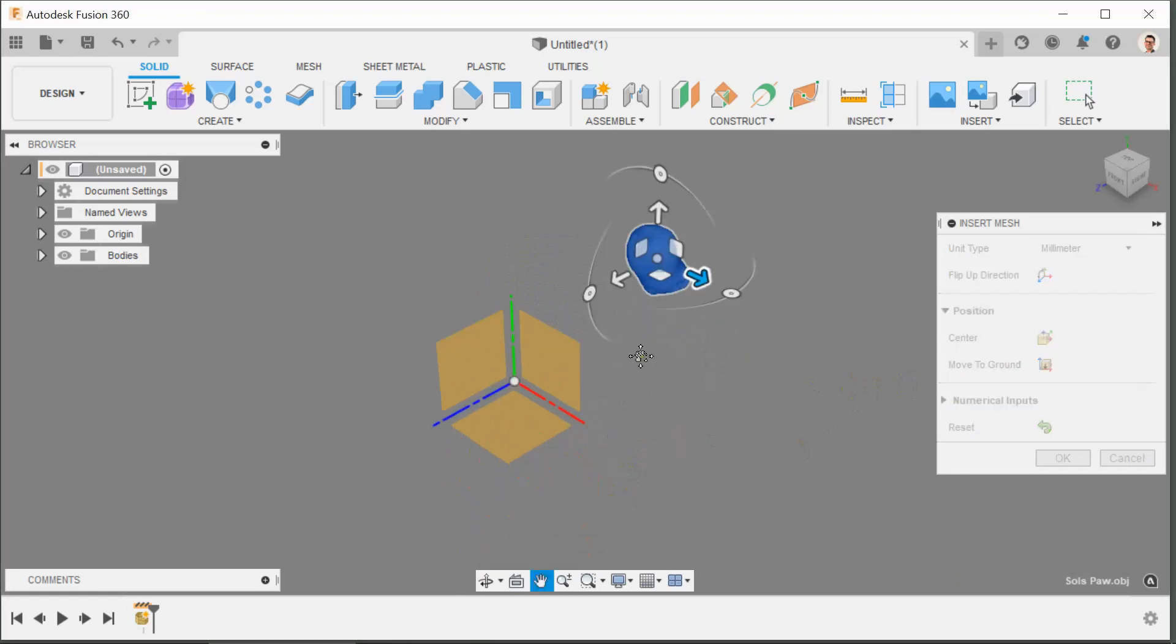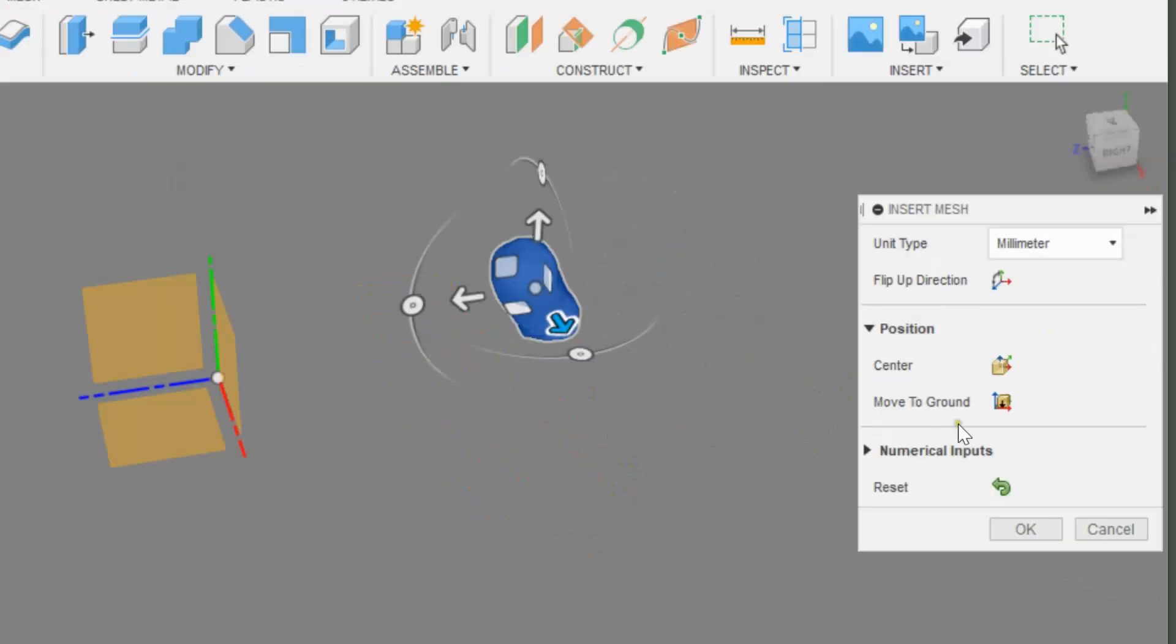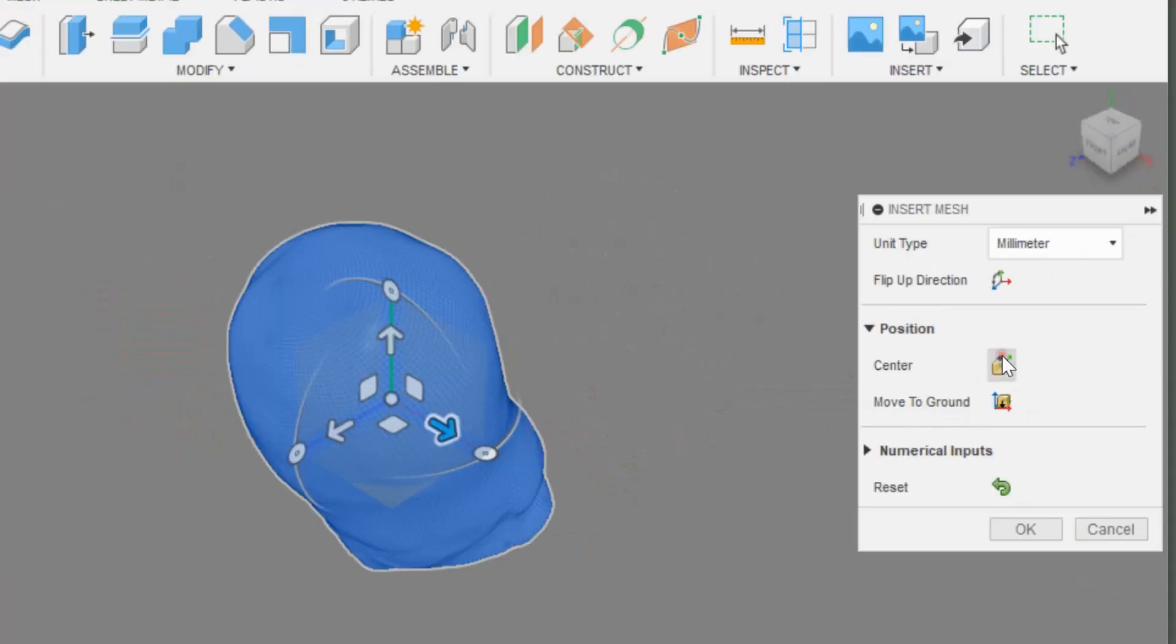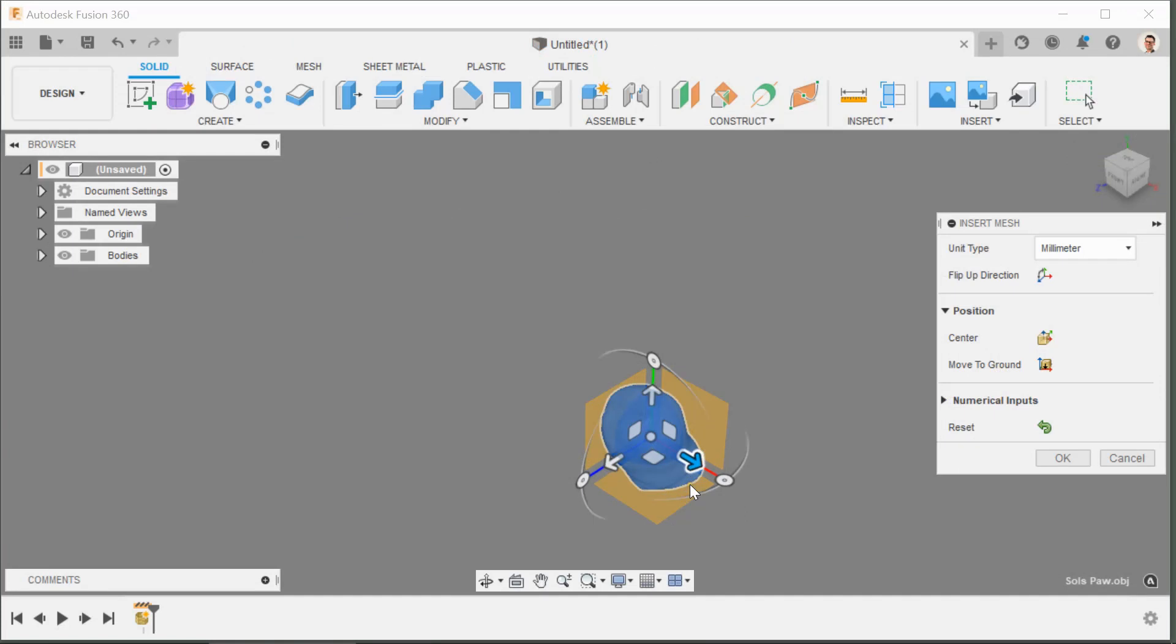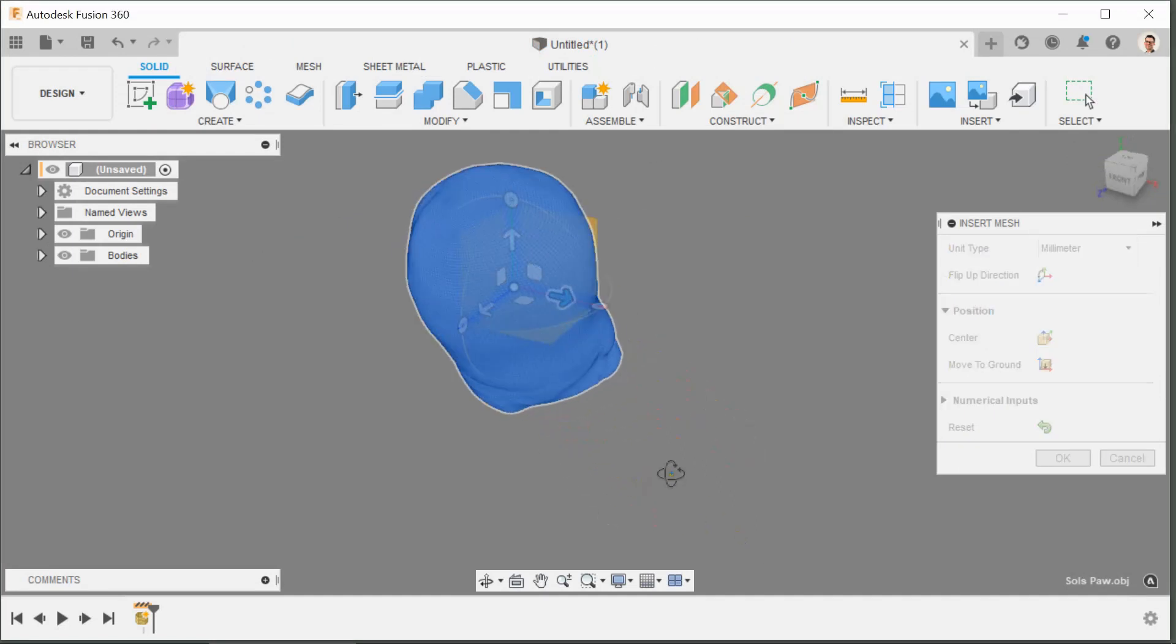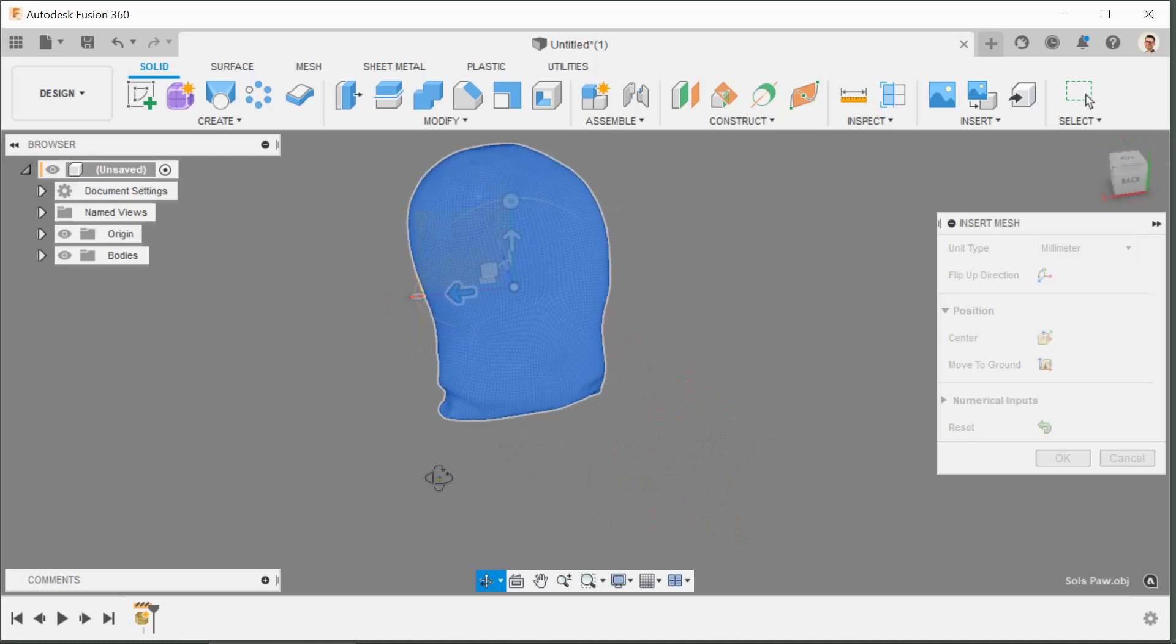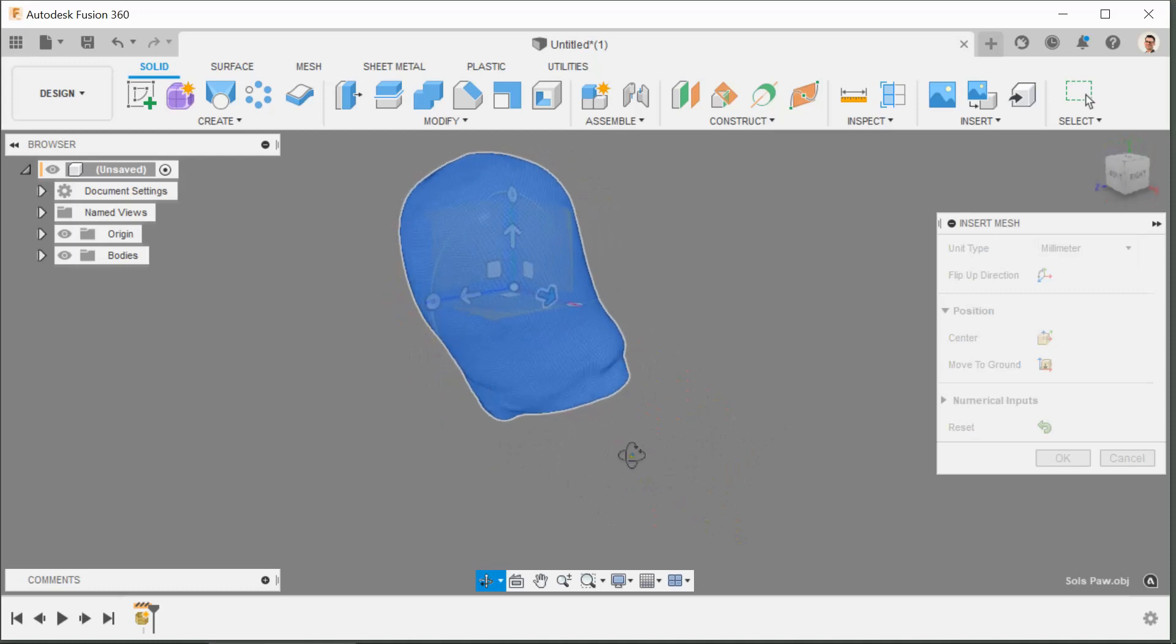Now it comes in some distance away from the origin, so what I'd like you to do first of all is just click center and that just brings the two together so it's working in the middle. It's still pointing up in the air, it comes in at a strange alignment, so we're going to have to get this now facing forward.